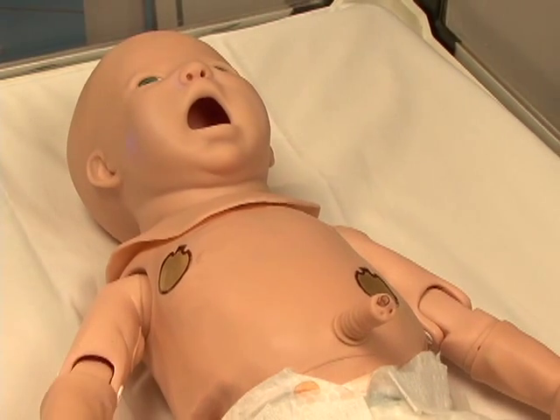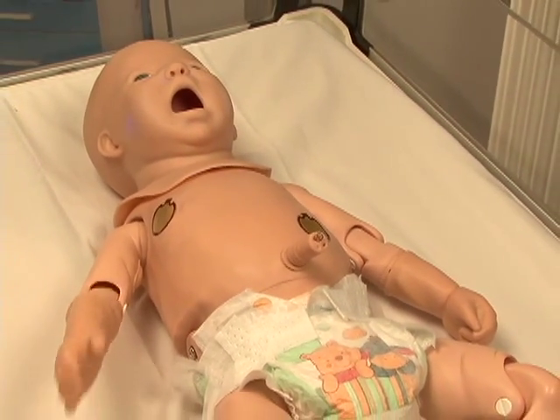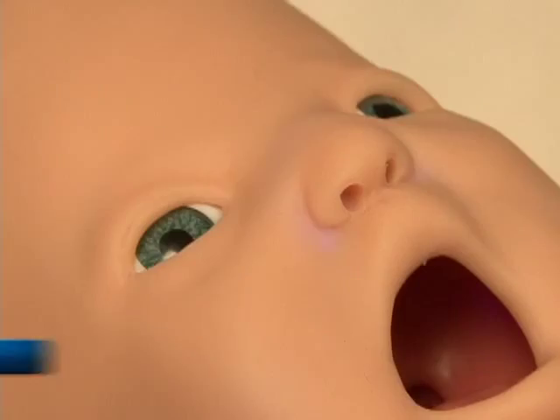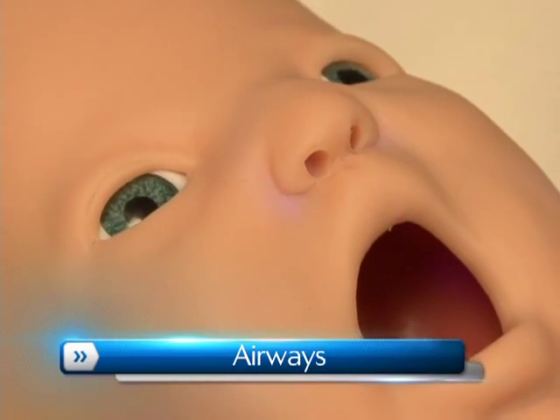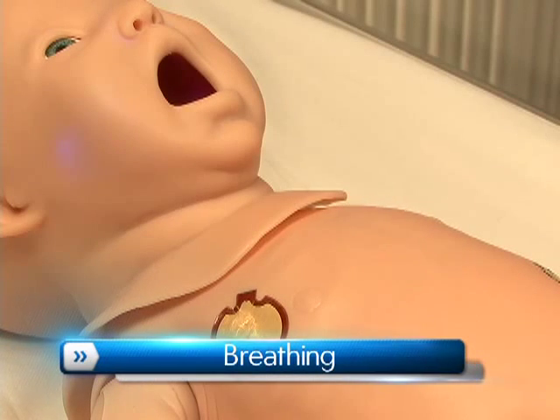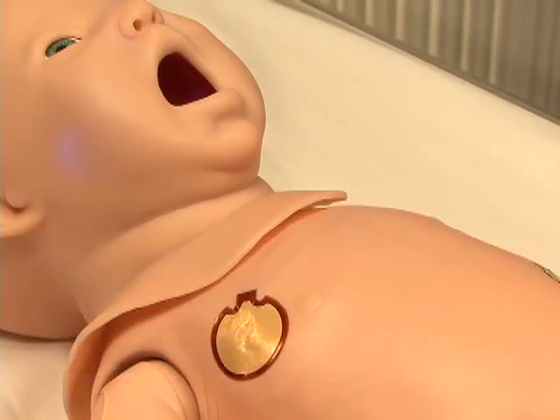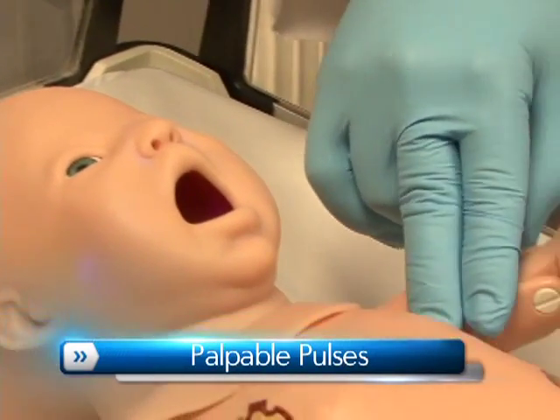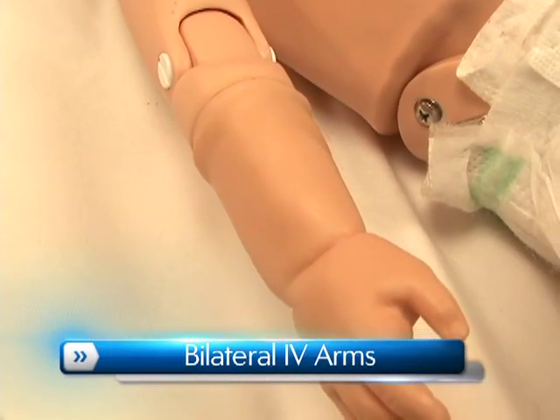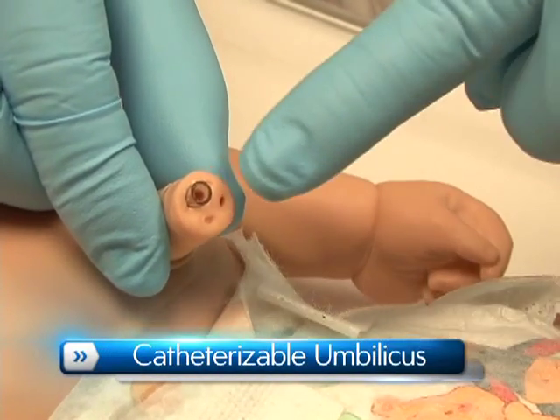Now that your Newborn HAL Total Mobile Solution Simulator is ready for use, let us take a tour of its many features, such as a realistic airway, breathing, palpable pulses, bilateral IV arms, and catheterizable umbilicus.